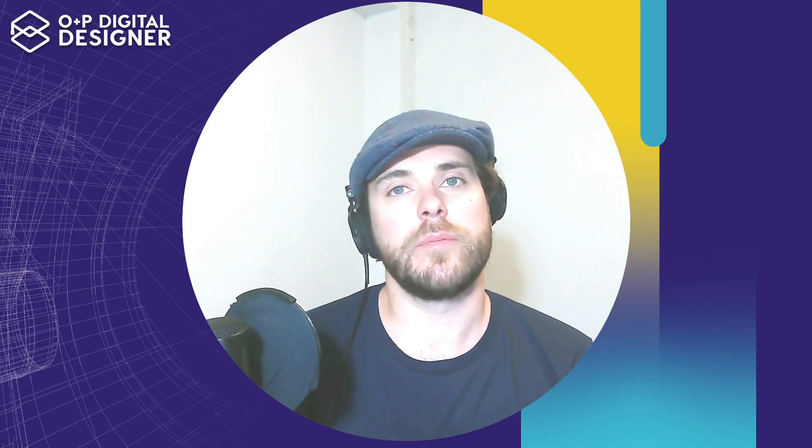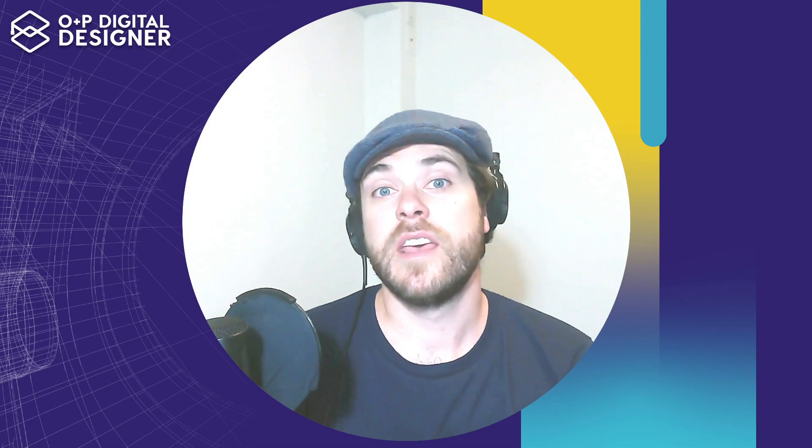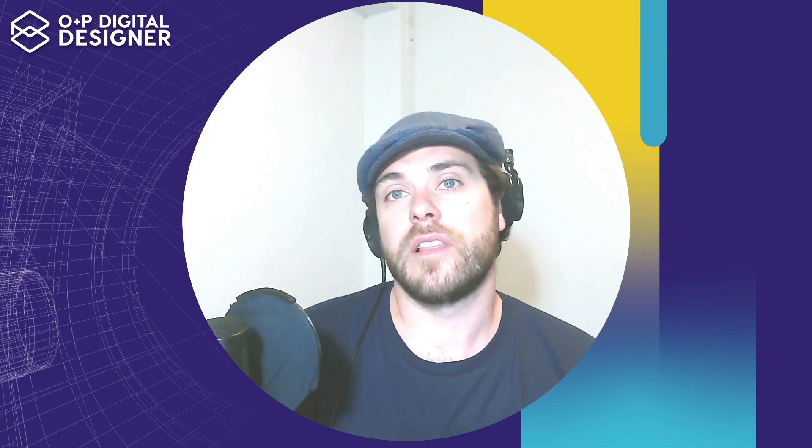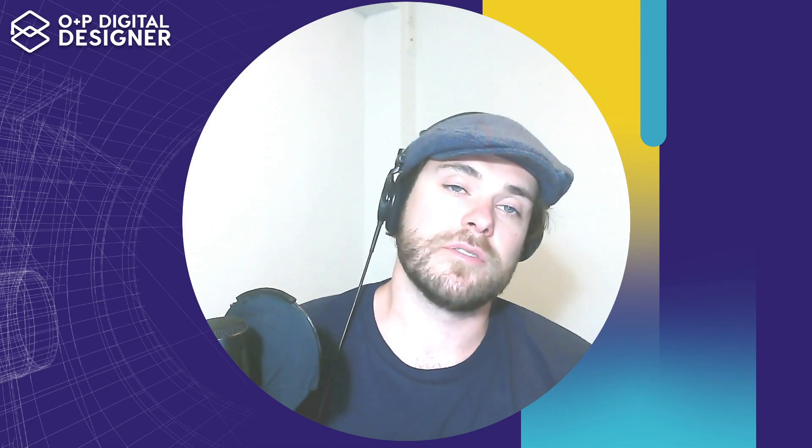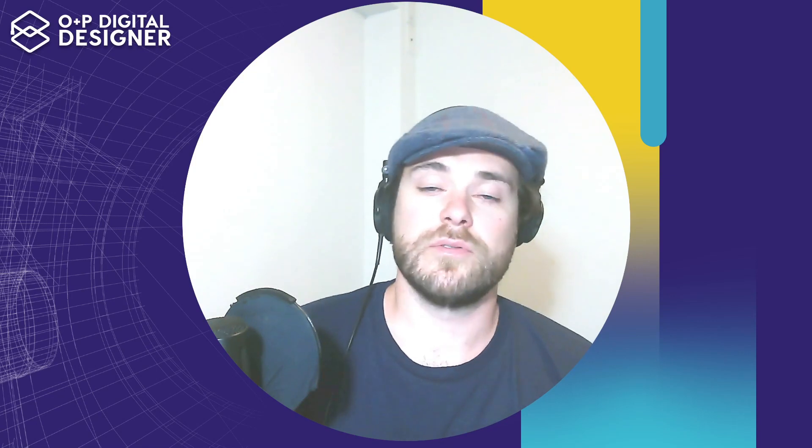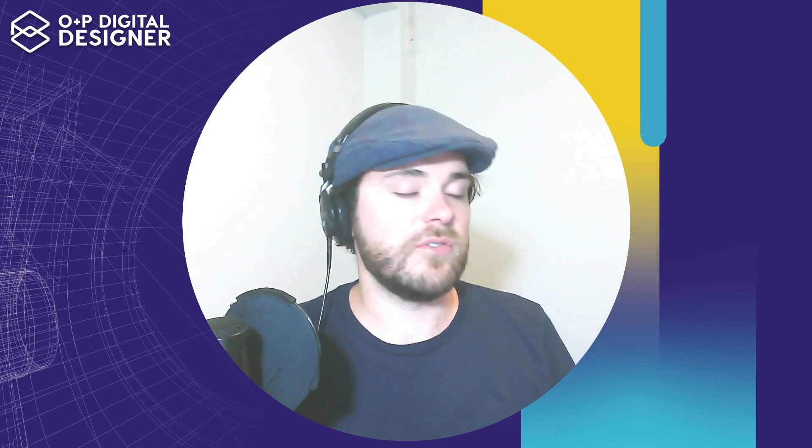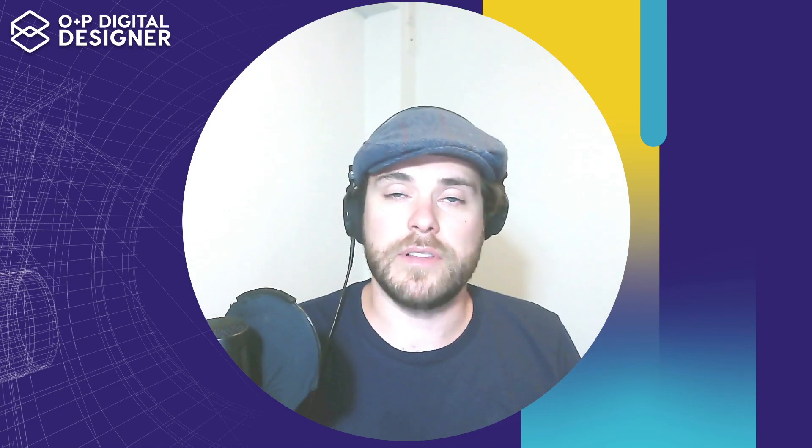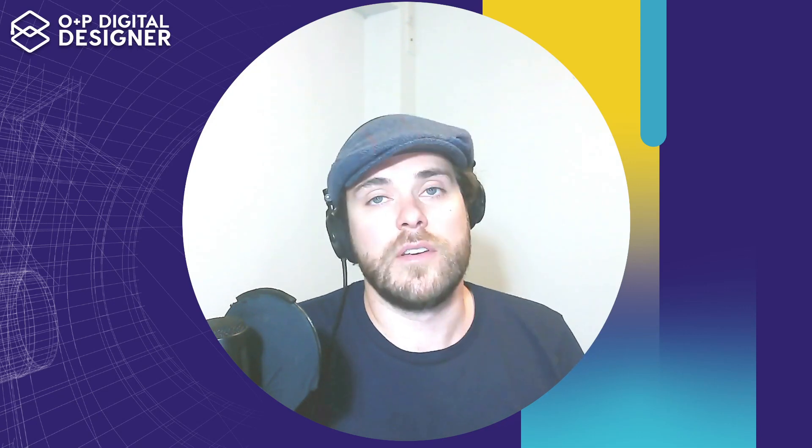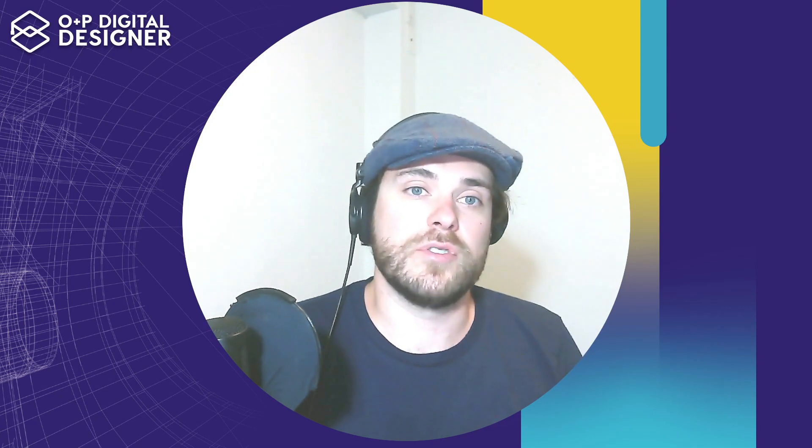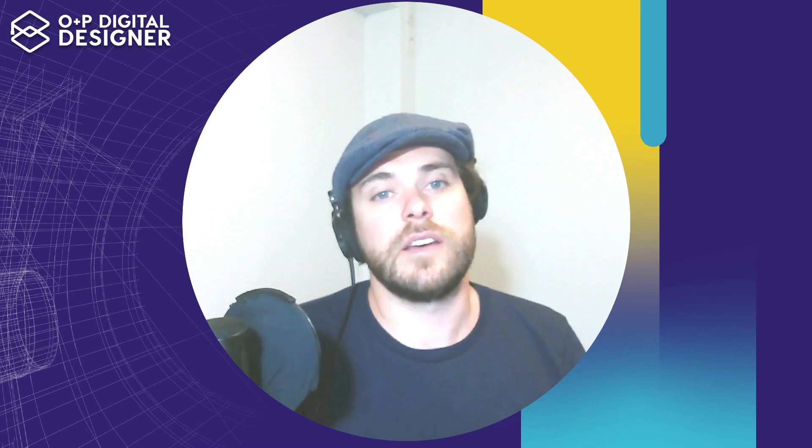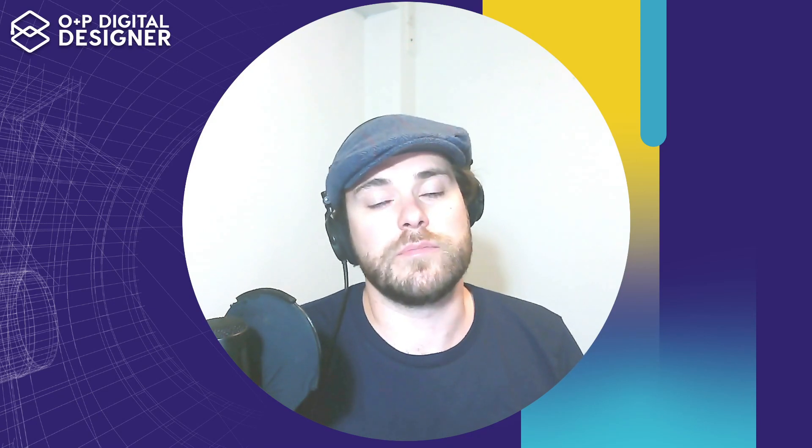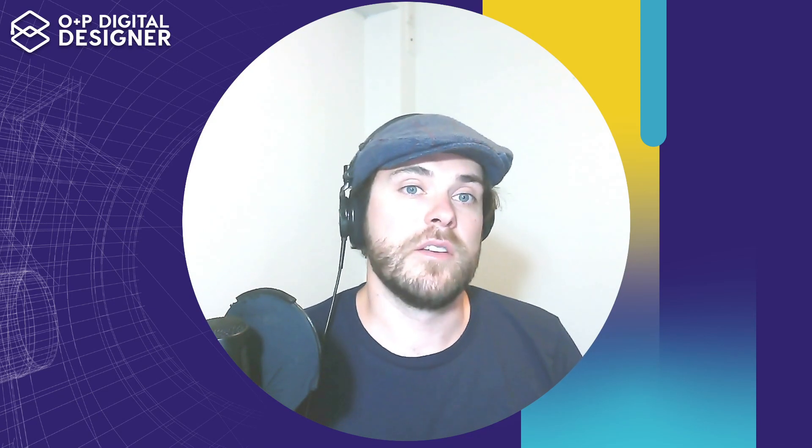Getting there is really challenging, and one of the best ways to get yourself motivated is to see what's at the end of the tunnel. This is exactly what I'm going to show you today in this course, this new course on BK and AK Cosmesis. I'm going to teach you how to build templates inside of Fusion 360. We can take our turnaround time from two hours to set up a template file down to 10 minutes or less per patient based off of a prepared scan.